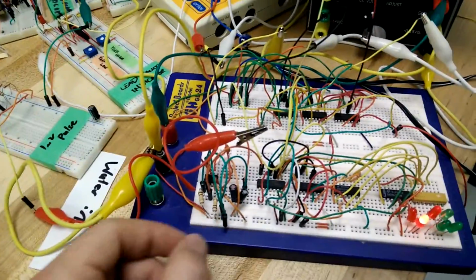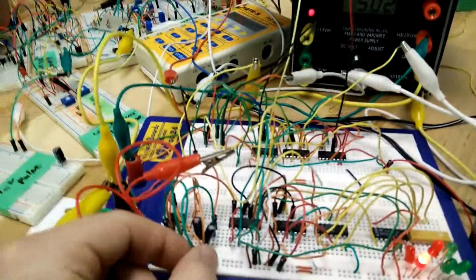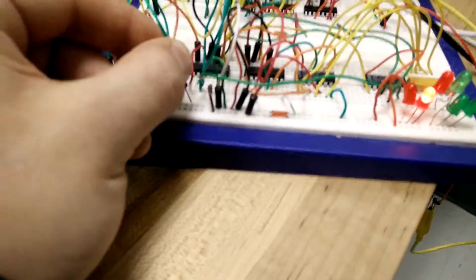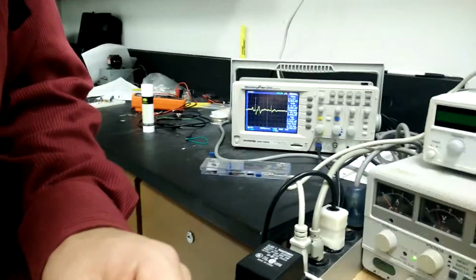I'll just go through the different settings here. Right now we just have a manual switch. As you can see, just our BPM there going on. If I go to lead 3, you'll see the lead 3 settings.